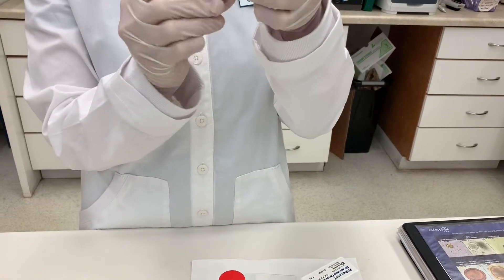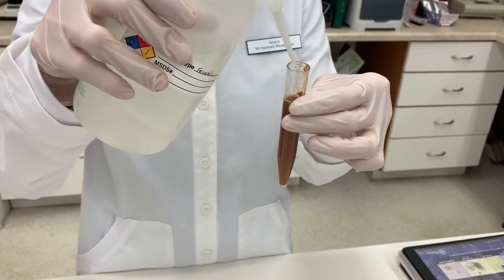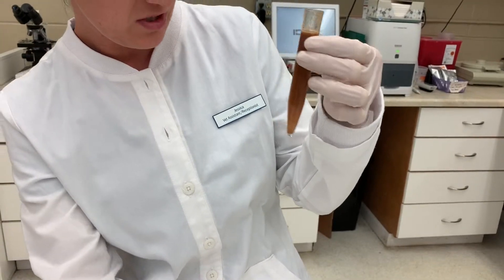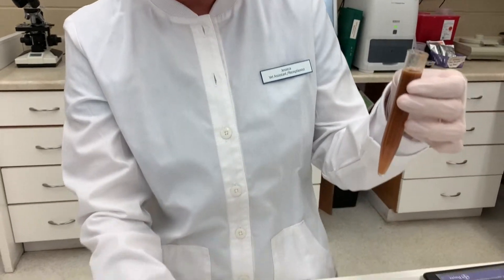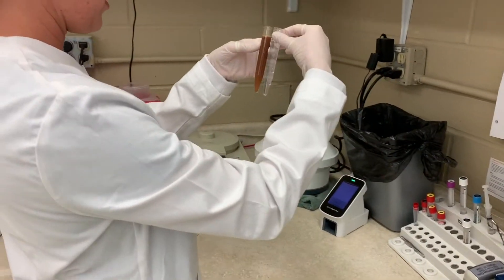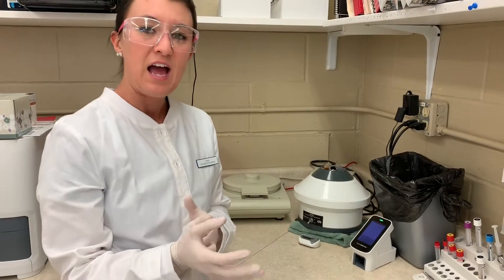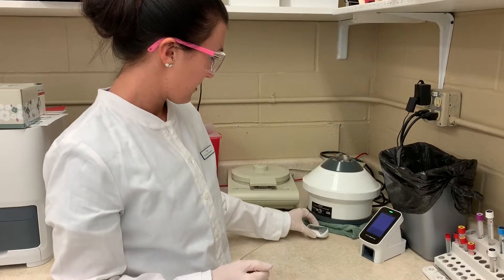I'm going to put more fecal in here until it's about a half inch from the top. Okay, so that looks pretty good. We'll bring this over to the centrifuge. With about the same amount in the counterbalance tube, we're going to place them opposite each other. This is going to run for about three to five minutes at 1300 to 1500 RPMs.